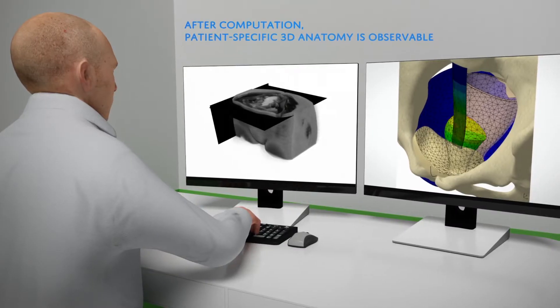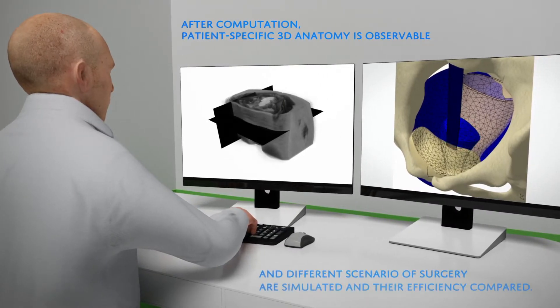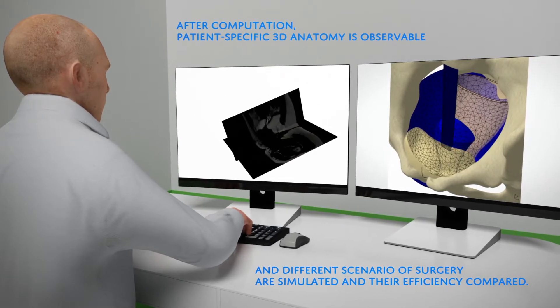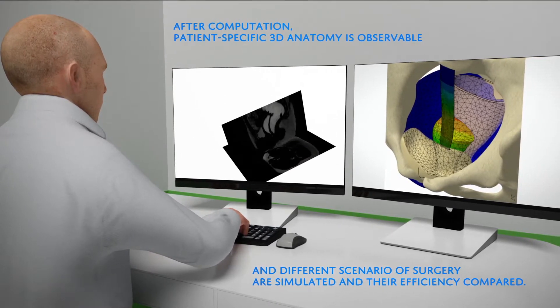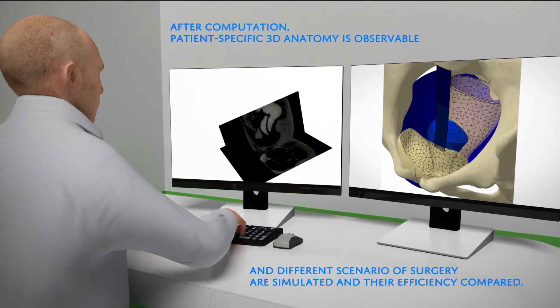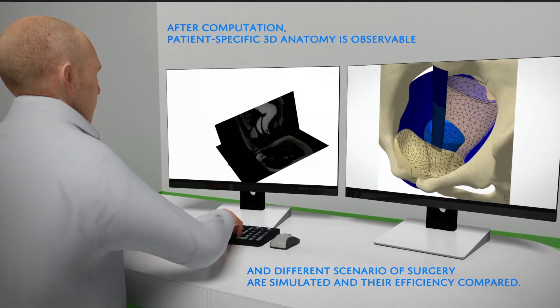Next to the medical exam, the data obtained are analyzed. The MD gets a report of patient specificities, 3D anatomy and specific mechanical properties of soft tissues observed.